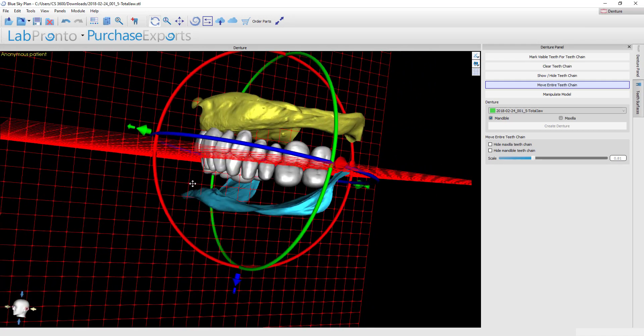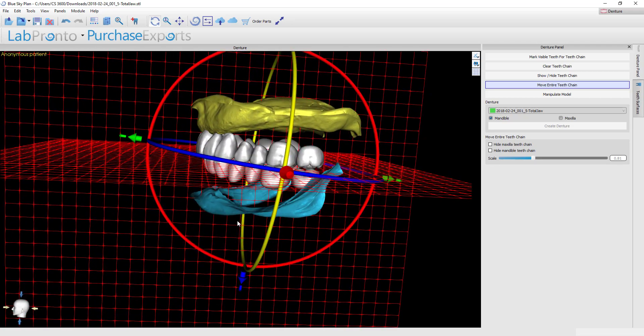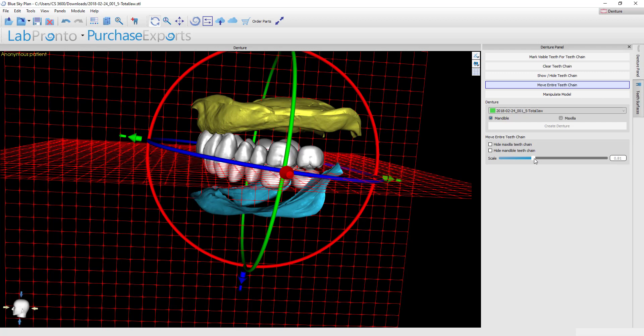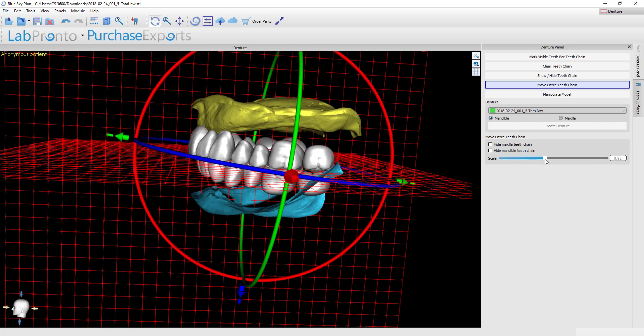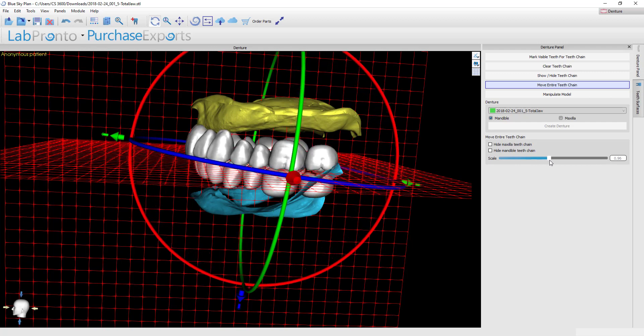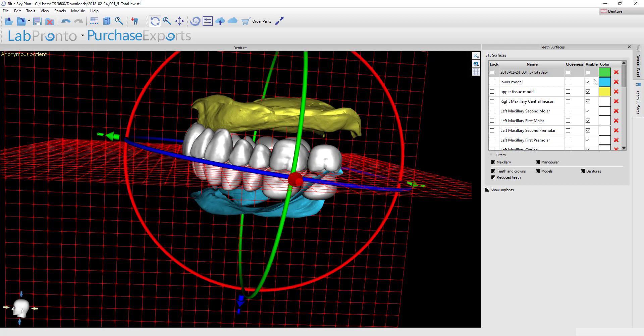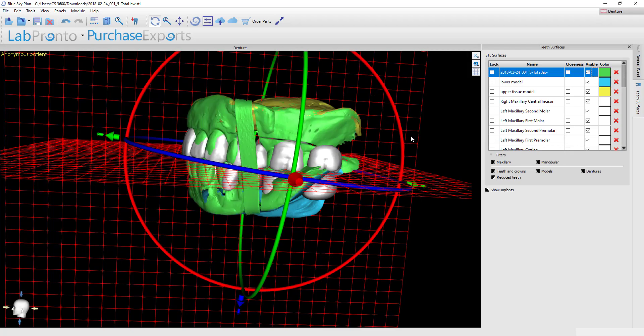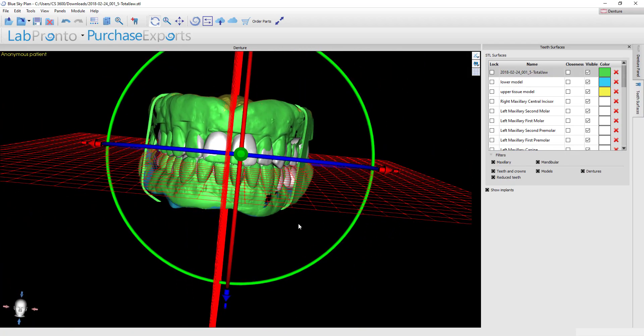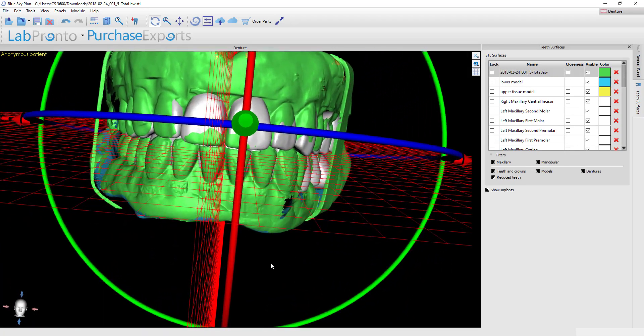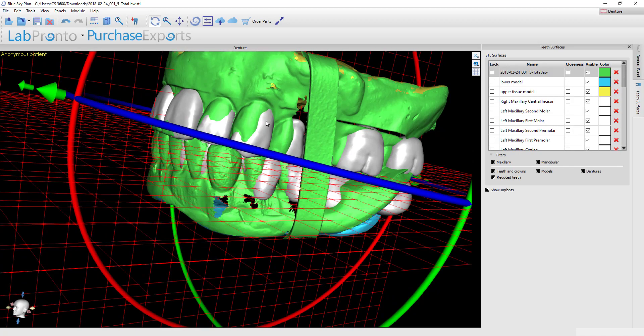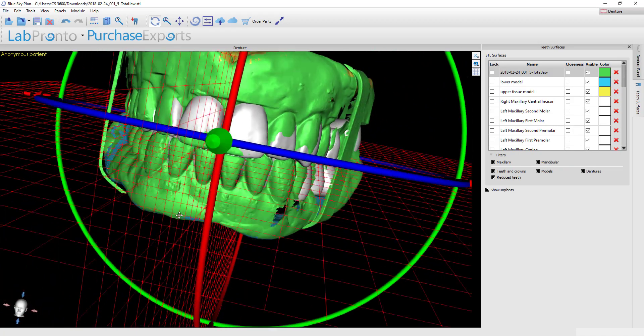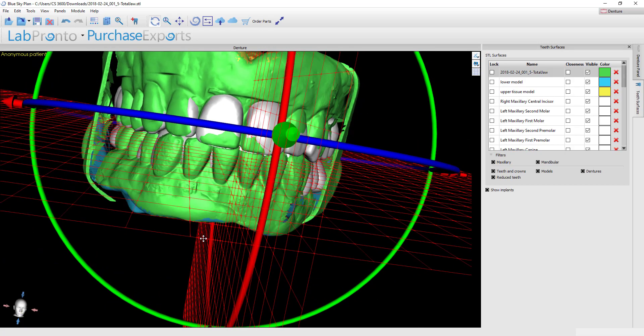The only reason I don't want to do that here is because by scaling all the teeth I'm also scaling down the size of the anteriors. If I go back to where it originally was and then turn back on the original denture, the anterior teeth seem to be aligned pretty well. The size of the canines forward all seem to coincide so I don't really want to scale those teeth down since these are going to be what drives the aesthetics.